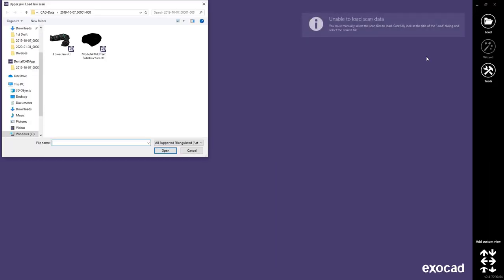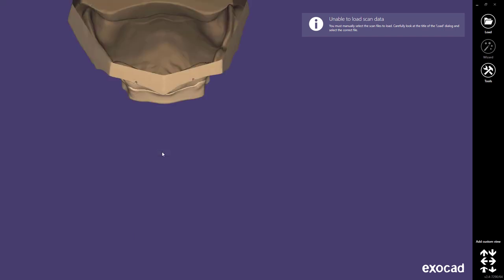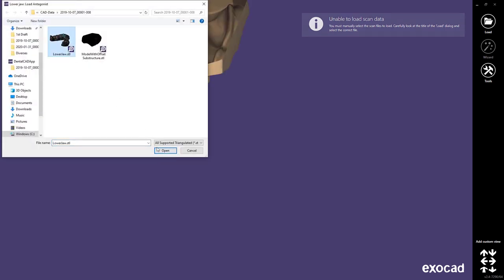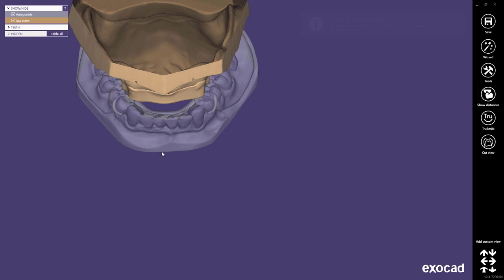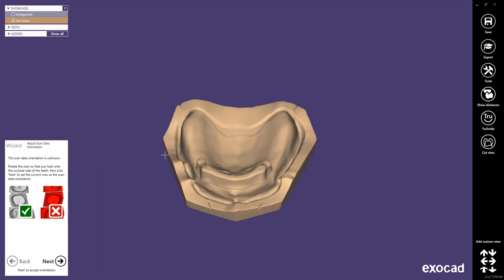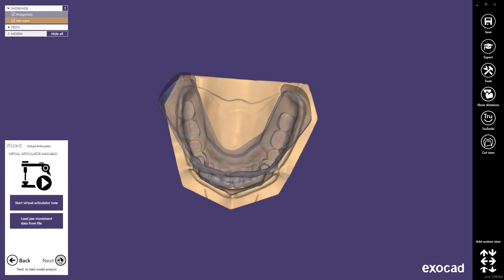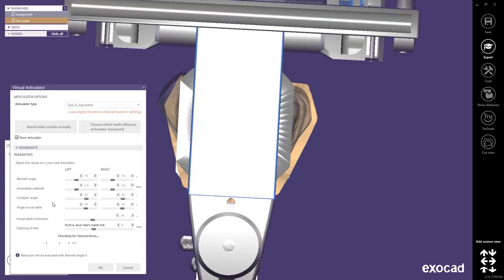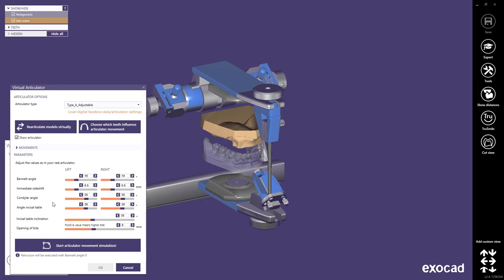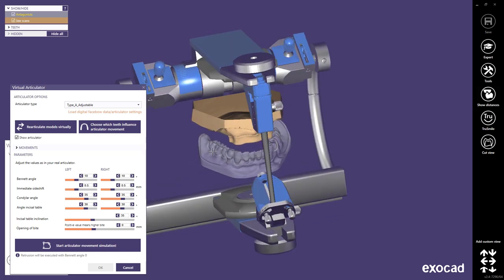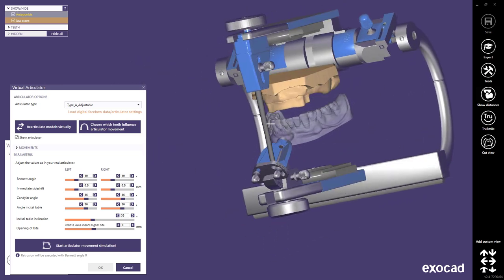Since we are using models created in other cases I have to import all of them. For the upper jaw I'm selecting my superstructure with design and for the lower jaw my partial framework with over dentures. Since the models are imported I have to select a view direction for the models as well. For the single arch dentures you actually have the option to use your virtual articulator as well. Since we imported the models I recommend checking the position and the direction of the models in the virtual articulator.